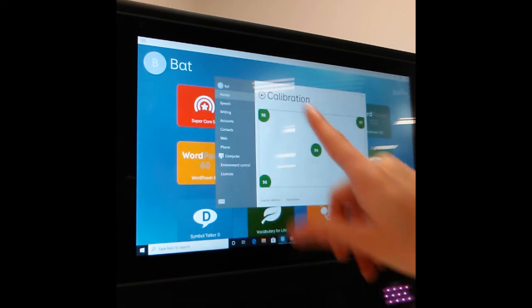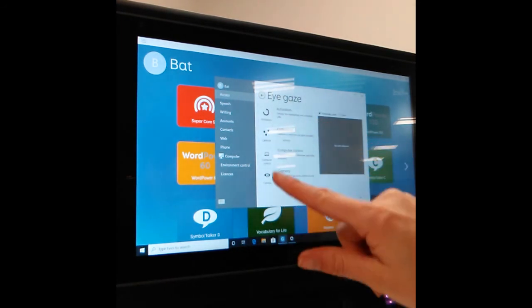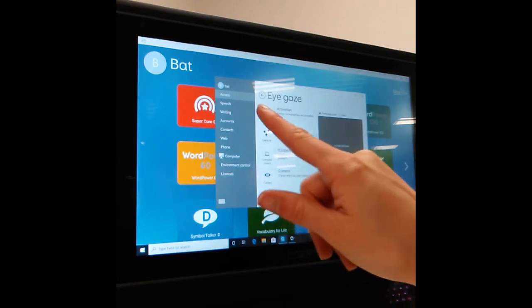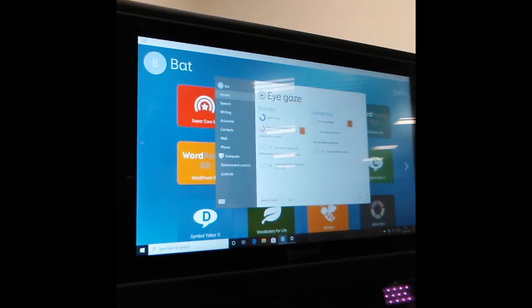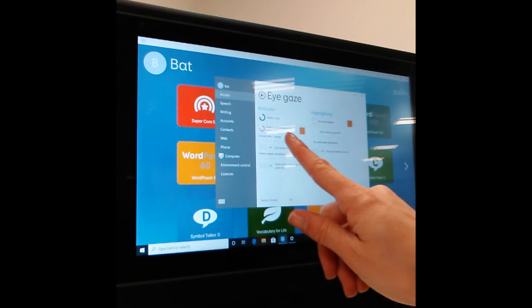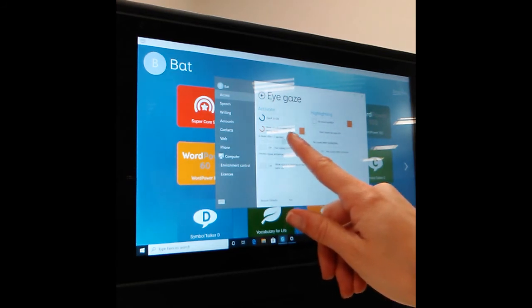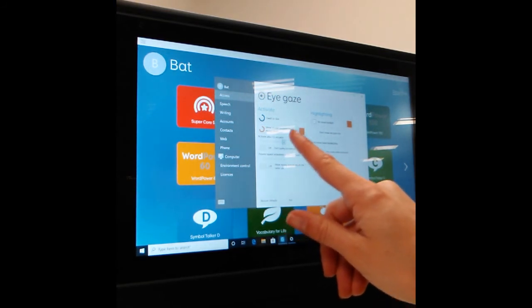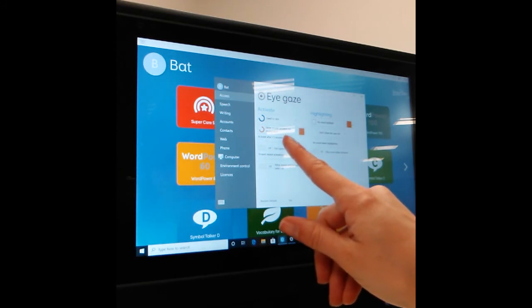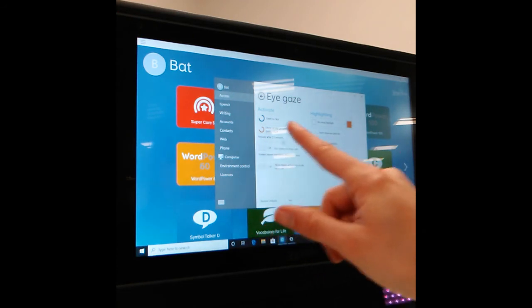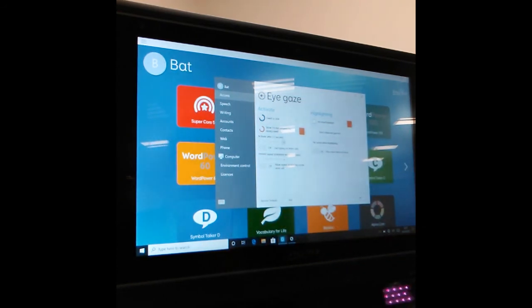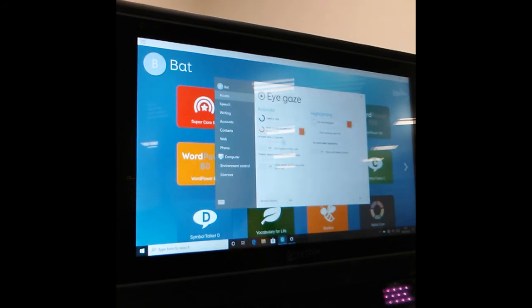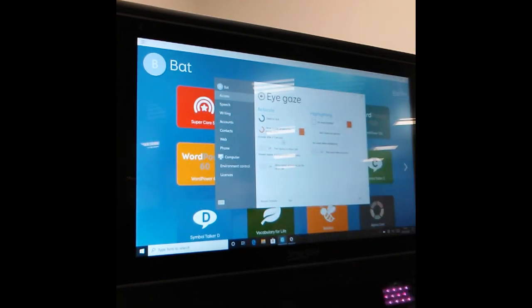I then go back and we can adjust some other settings if we would like. For example, you can do Activation, and this Activate After just means that it's going to take a little bit longer for you to have to look at an item before it would select. It's important to have that at the right level, because if it's too fast it can just select things really quickly and can be quite distracting and off-putting. And again, if you've got it a bit too long, it can be quite tiring.